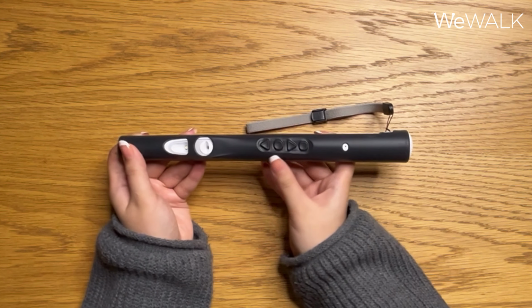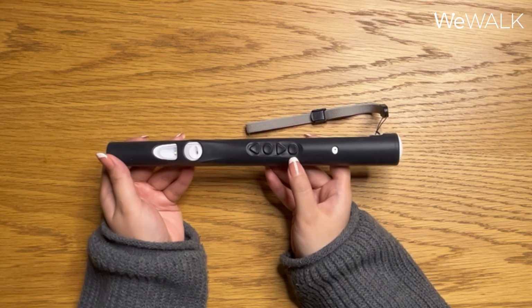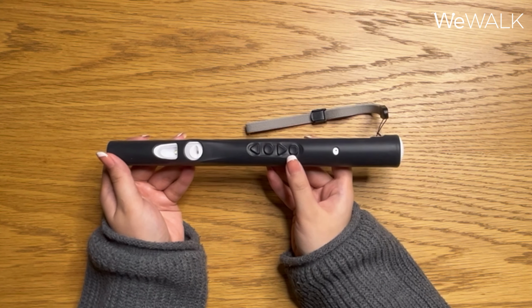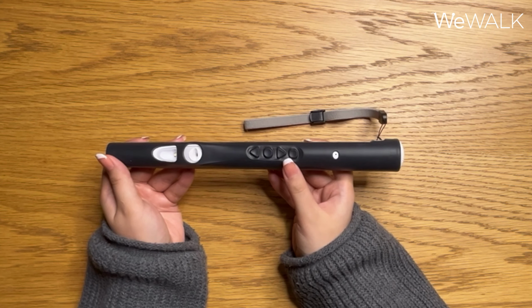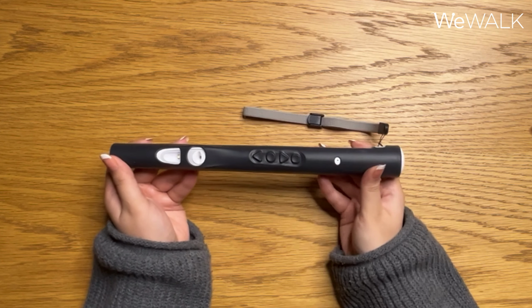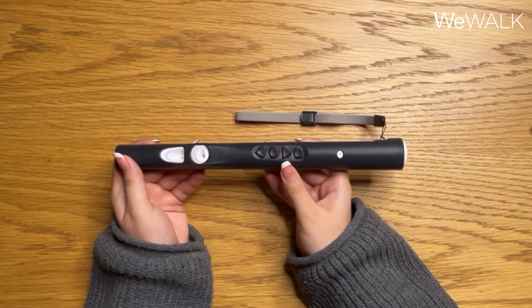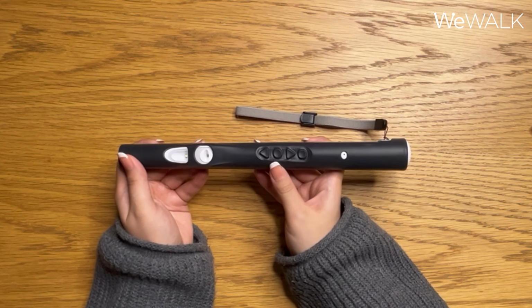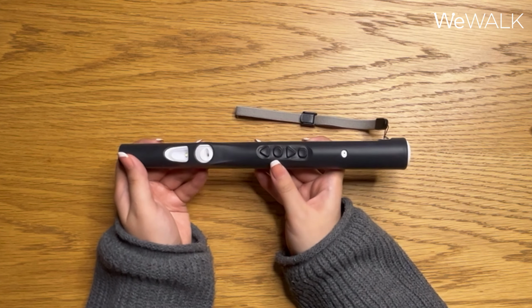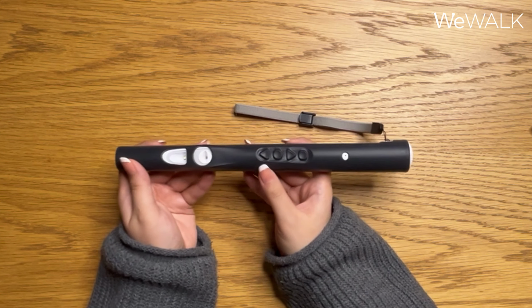The next thing we have is the 4 buttons that are used in the voice assistant and the voice menu modes. The first button we have is the square button, which is a power on and off button. To turn the cane on, you will press and hold this first square button, and the cane will turn on. The second button we have is the upward facing arrow button, which is the next button. Third, we have the circular button, which is the select button. And lastly, we have the downward facing arrow button, which is the back button.